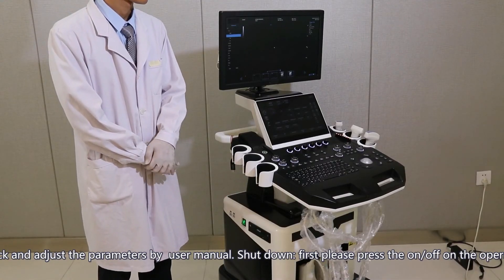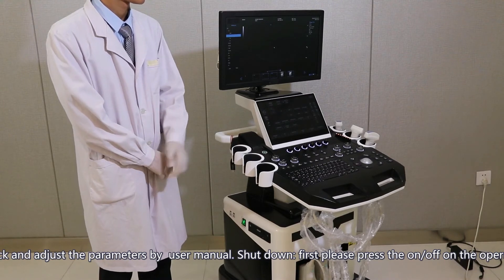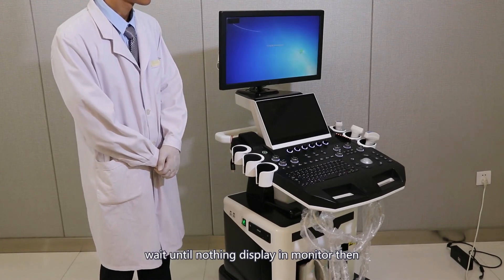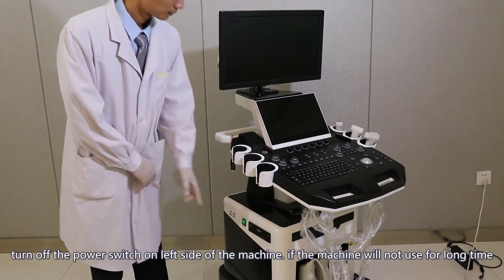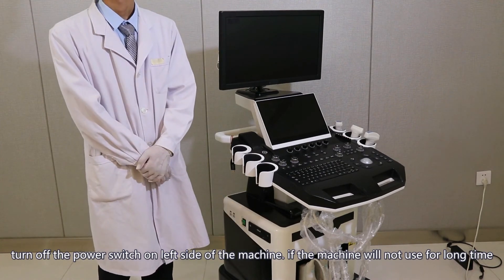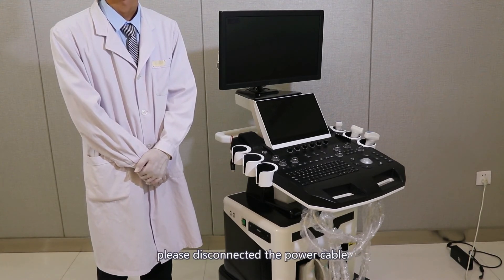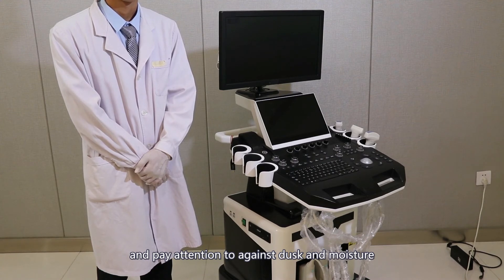Shutdown: press the on or off key on the operation panel. Wait until nothing displays on the monitor, then turn off the power switch on the left side of the machine. If the machine will not be used for a long time, please disconnect the power cable and pay attention to protecting against dust and moisture.